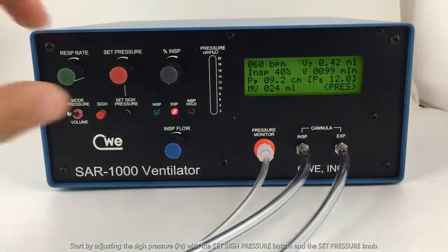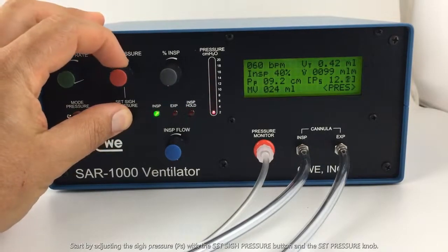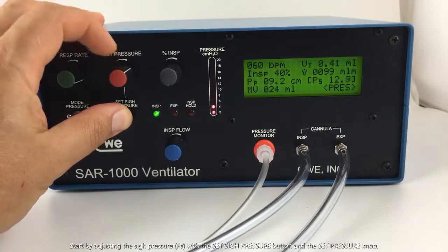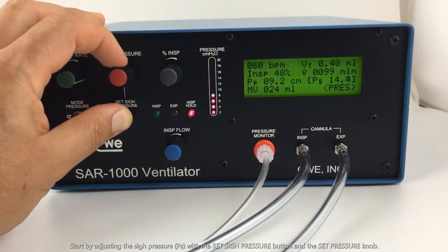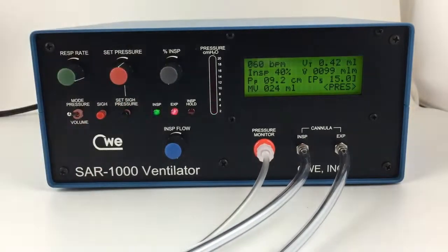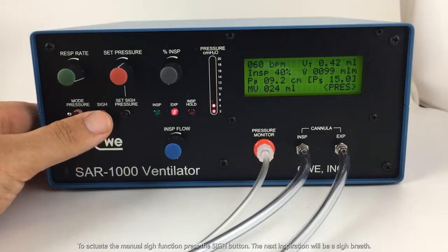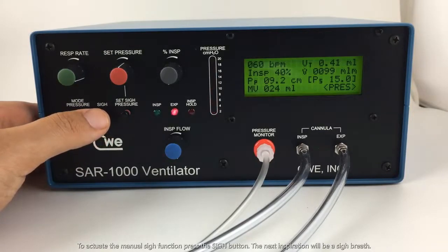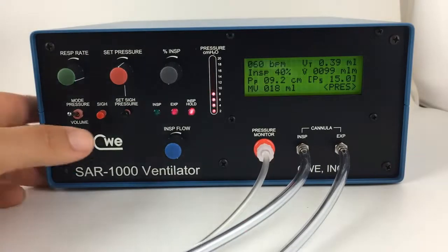To adjust sigh pressure, we press the sigh pressure button and turn the set pressure. As we can see, the sigh pressure is increasing. Now that we have the sigh pressure set, we can use the manual sigh button. The next breath after we press the sigh button will be a sigh breath. And we can see that it worked. Once again.